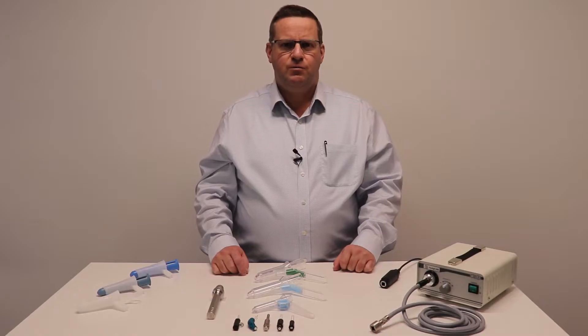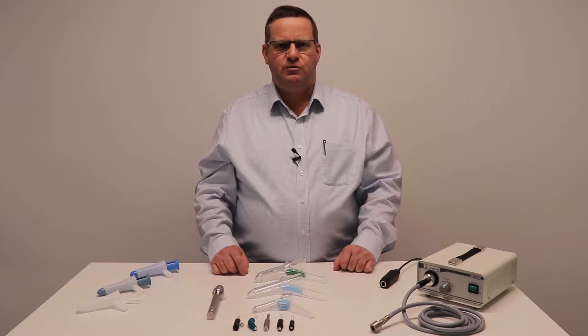Hello, I'm Daniel. This product presentation will show you our proctology range and how they connect to the options of light sources that are available. Hallmark Surgical has been focusing in colorectal instrumentation for over 15 years and we can supply you a full range of single-use proctoscopes and anoscopes.